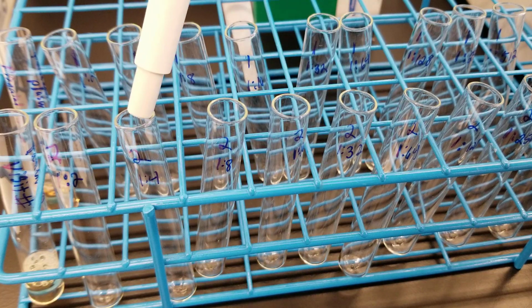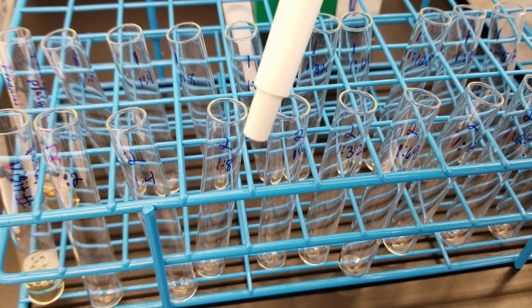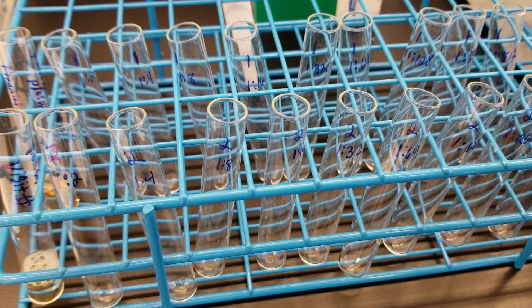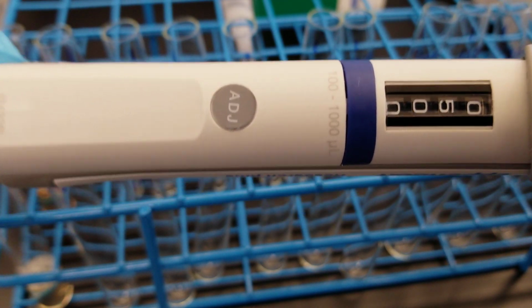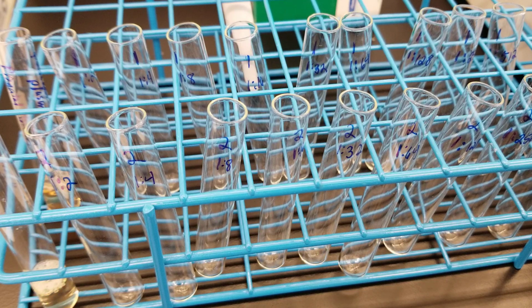Up front is the second visit here, the most recent visit, and it's following the same thing. It's 1 to 2, 1 to 4, 1 to 8. So we're doing a serial dilution, meaning that you have a consistent dilution factor in between each tube. So I have set my pipette to be 500 microliters. So that's going to be 1/2 ml. And we're going to do that because we want to make sure that we have enough specimen to do the testing, but at the same time, you want to make sure that you have a good enough amount to put against reagent cells and test them.